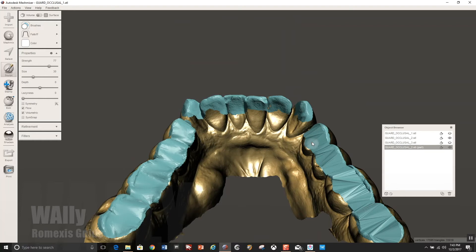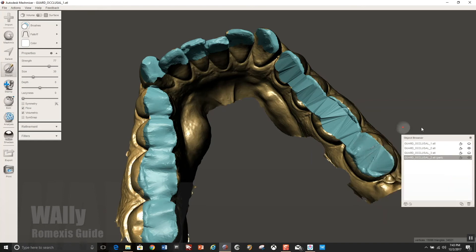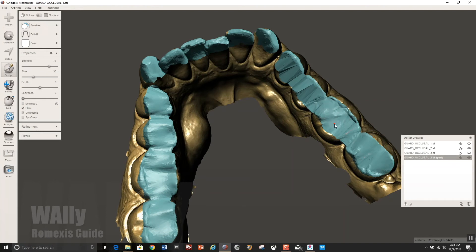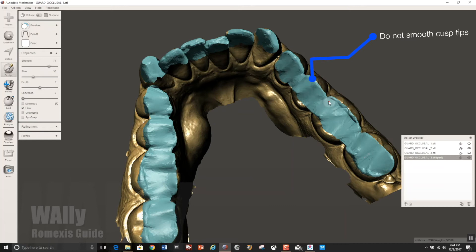And you have to envision a negative of this on the guard. Because the minute we're going to kind of suck down to that occlusal guard and that's kind of why you want a flat surface. You don't want anything that's going to interfere with the patient's occlusion on that. Do not touch the cusp tips though.